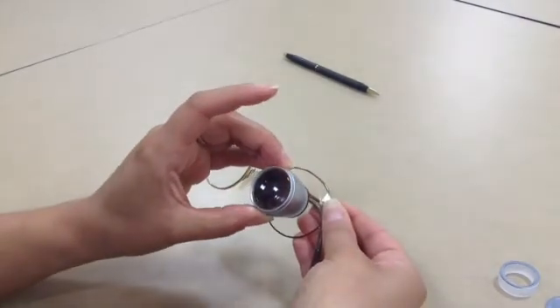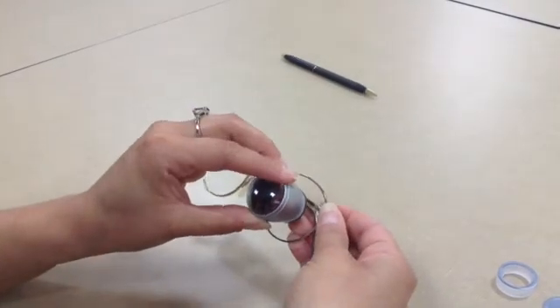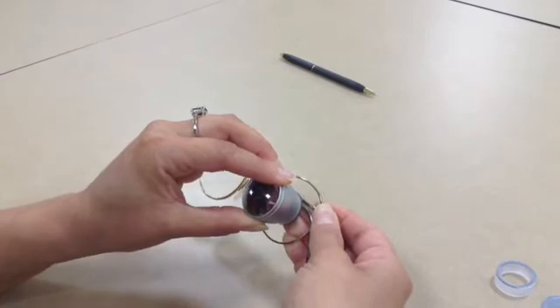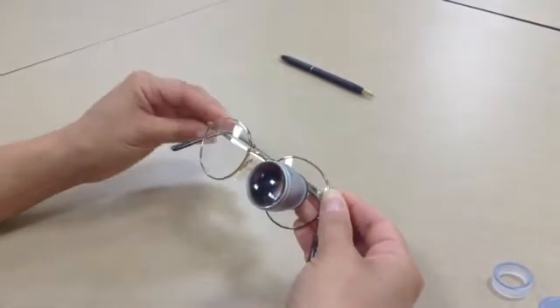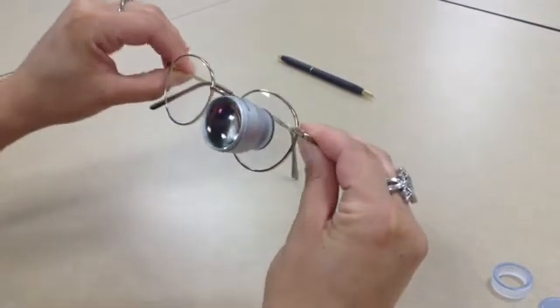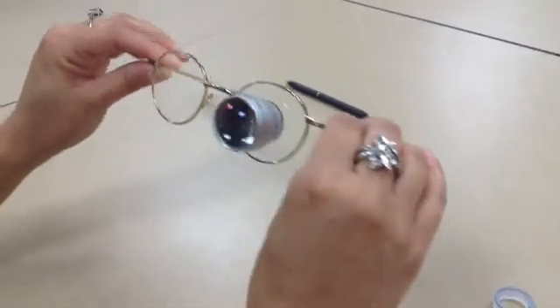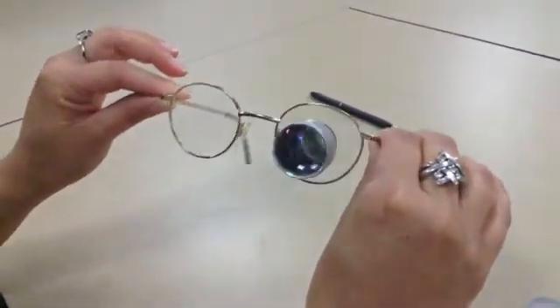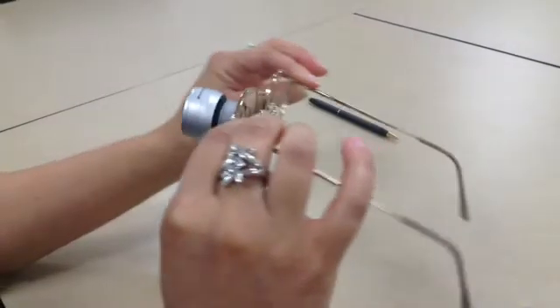The adhesive is actually on a very thin layer of foam, and that makes sure that the telescope is mounted securely onto the eyewear. And as you can see here, we have it set so that the dot for the pupil is right in the center.